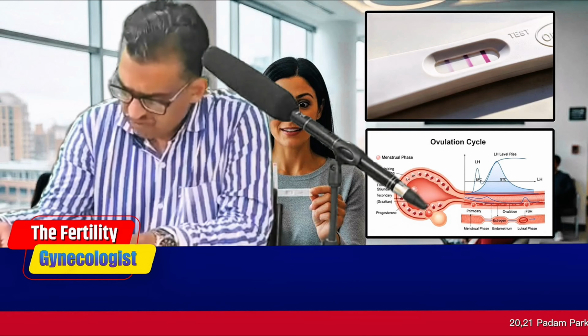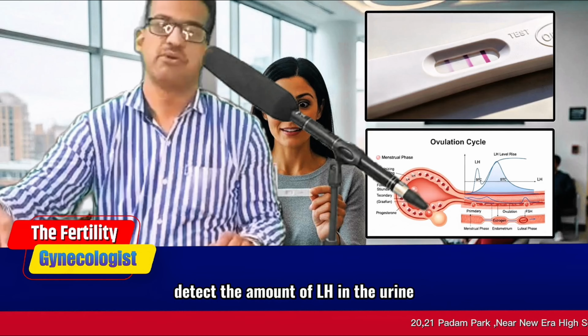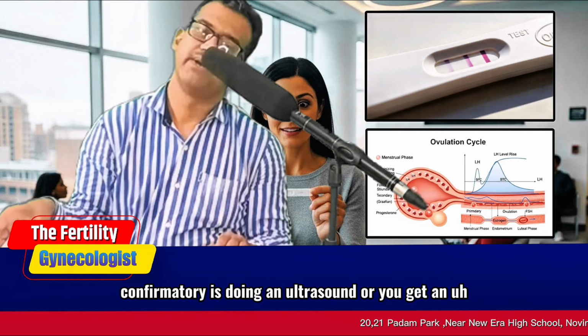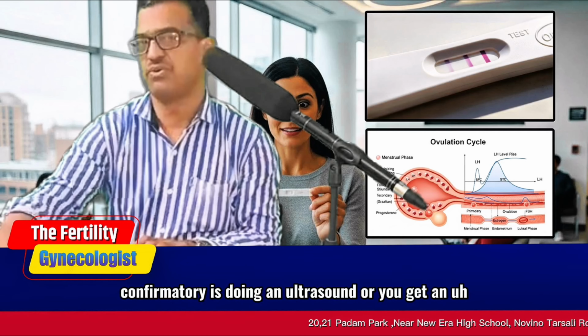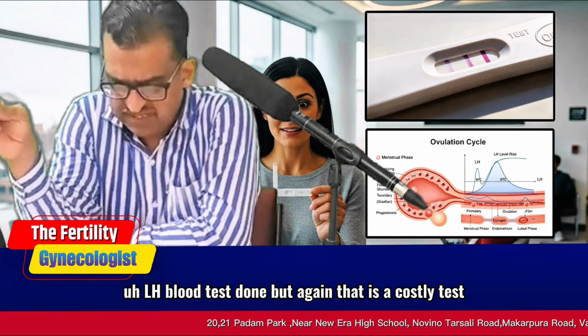So how do these ovulation tests work? Again, I have told you they basically detect the amount of LH in the urine. Confirmatory is doing an ultrasound, or you get an LH blood test done, but again that is a costly test.